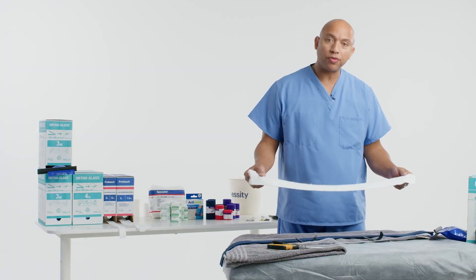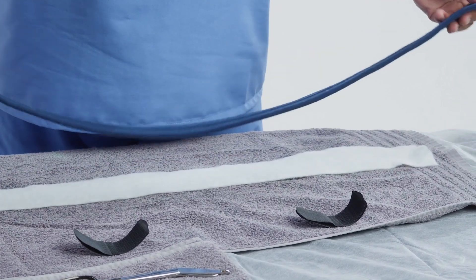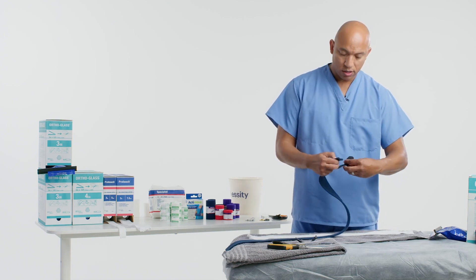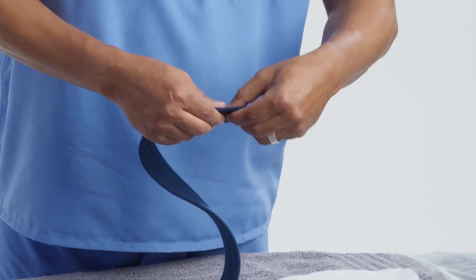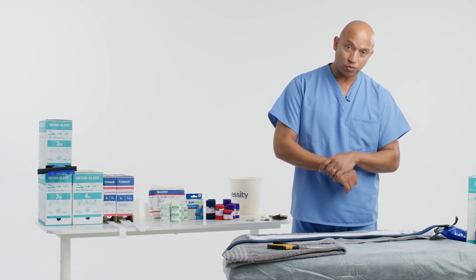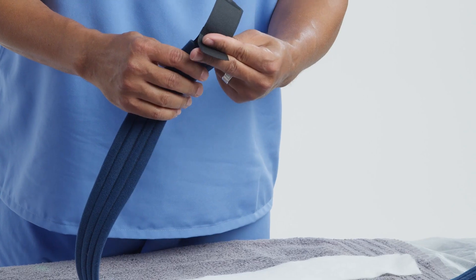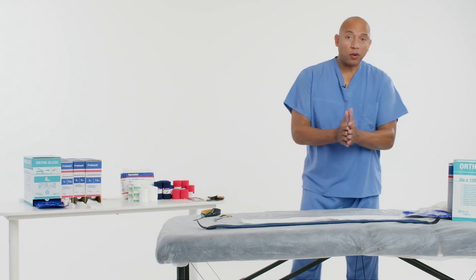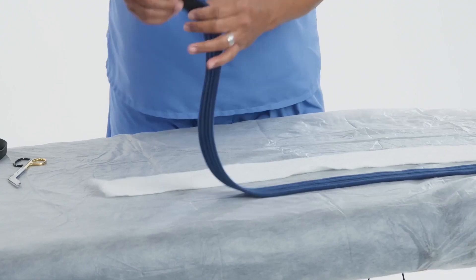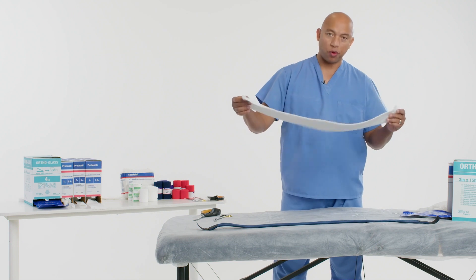What we have here is our ortho glass template measurement. Then we have our sling on the roll measurement that's already cut. Now let's prepare it. We're going to get our Y-tabs — hook portion — and attach one in. One side is going to be looped around the person's wrist on the affected side, and the other portion is going to be attached to the ortho glass using different cuts. So now we have our sling on the roll pre-cut with the Y-tabs added, and here's the template for the ortho glass.